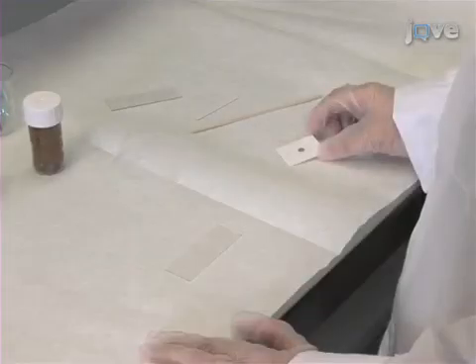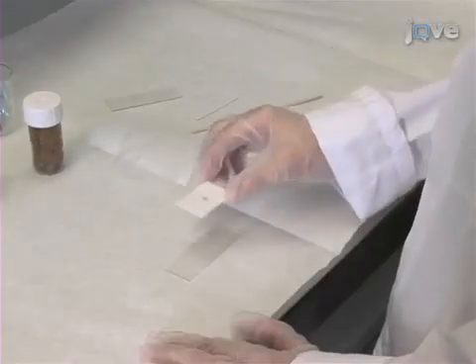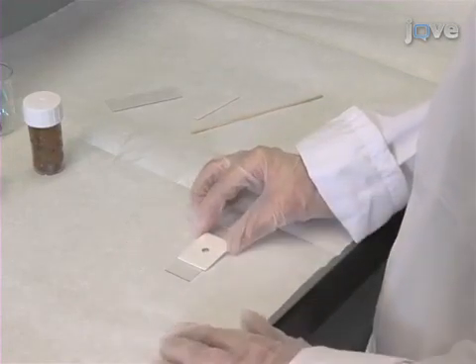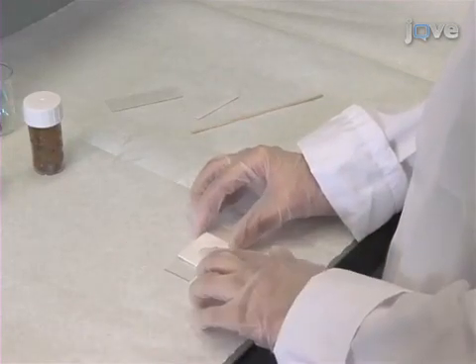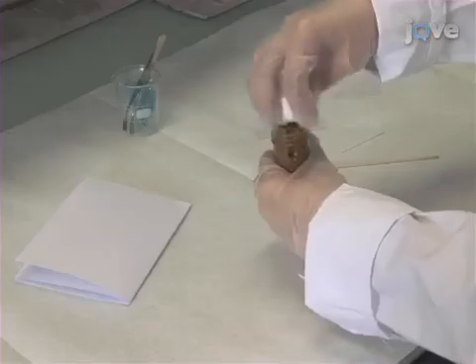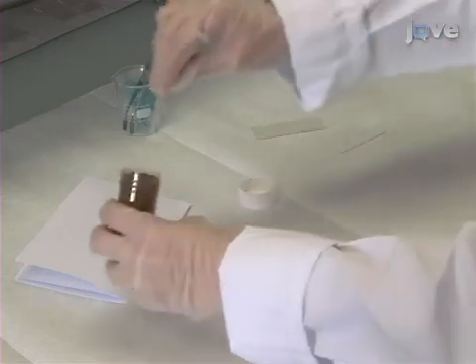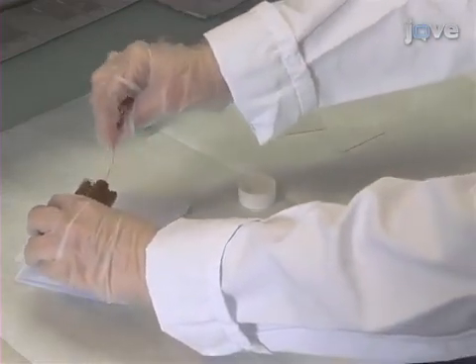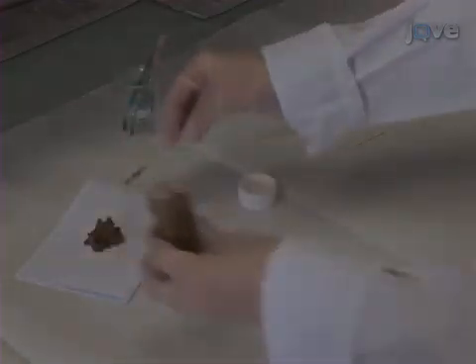The Kato-Katz technique is employed to facilitate detection of parasite eggs that infected subjects pass in their faeces. Begin by placing a standard Kato-Katz template in the centre of a microscope slide. The template has a hole in the middle for holding 41.7mg of stool. Wearing gloves, scoop 2-3g of a fresh faecal sample onto a piece of newspaper or aluminium foil.